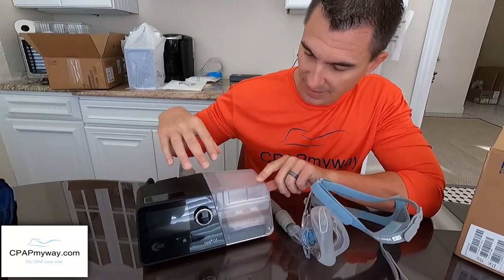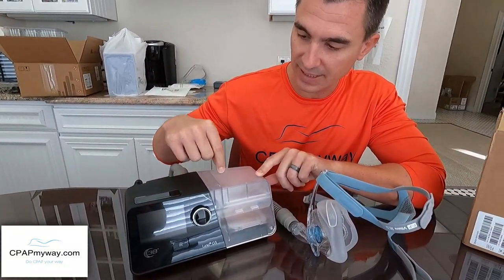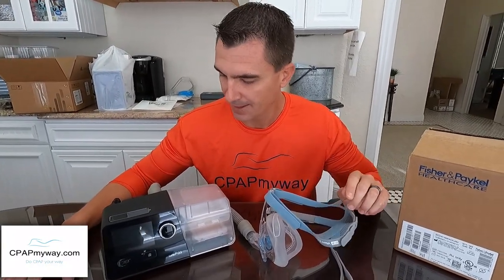Let's start with the overview of what's going on with your CPAP running out of water. This is the Luna G3 CPAP, and much like almost every CPAP these days, it has a built-in heated humidifier integrated to the machine. This one holds around 320–400 milliliters of water. It heats that water so that air passing through the humidifier picks up humidity and delivers it to you. In certain room conditions — really dry rooms — it will absorb a ton of water as it passes through and can run out in the middle of the night.